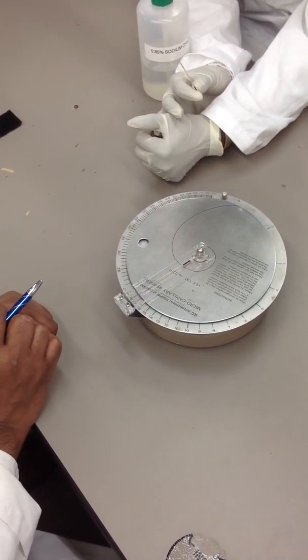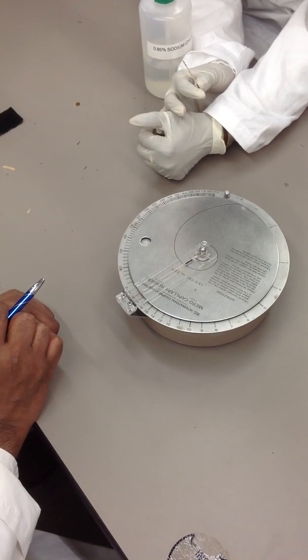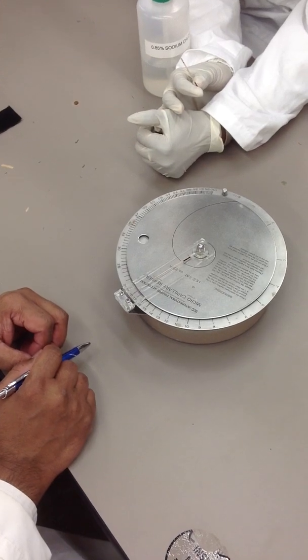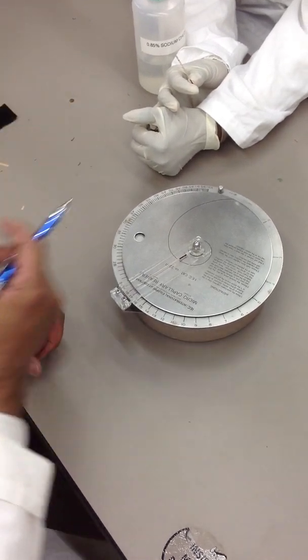So, you see it's between 18 and 17. So, this is more like 17.5, the hematocrit. And you can see it's very small. It's very low. Yeah.